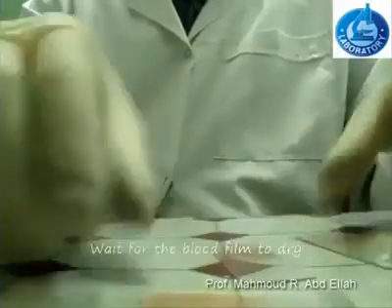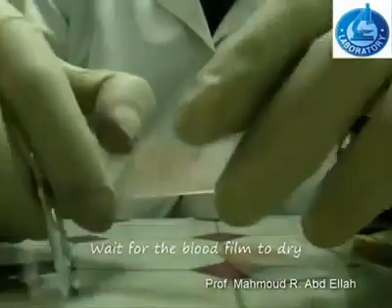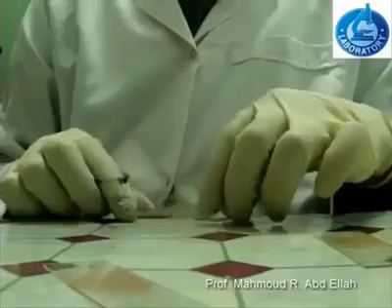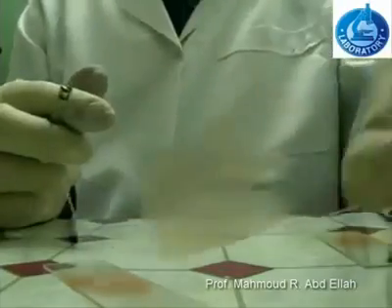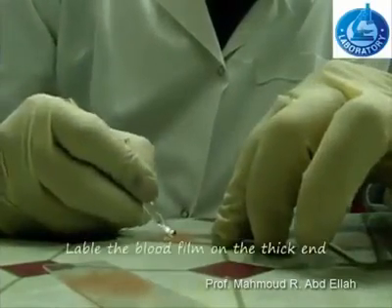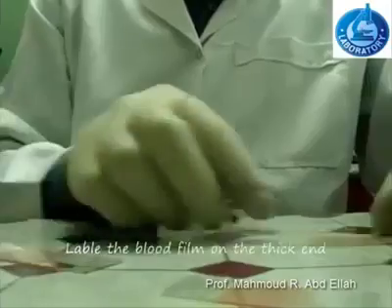After spreading the blood film, wait for the blood film to dry, and then the most important step is to label the slides. You can write a number or date or the name of the patient on the thick end of the blood film.